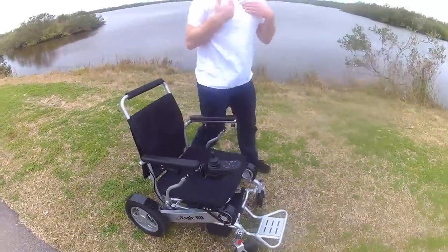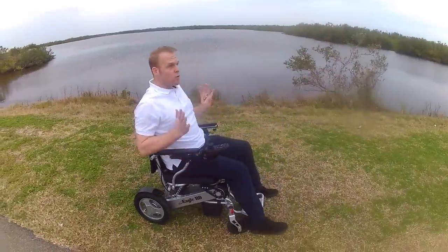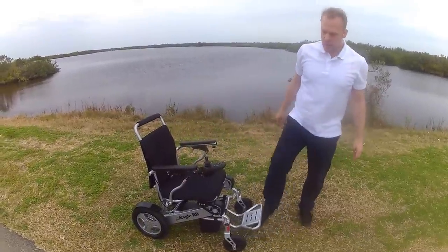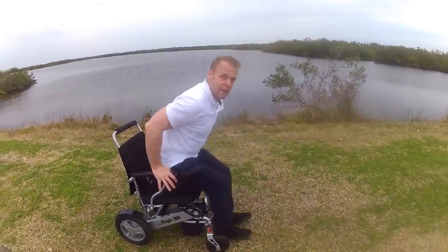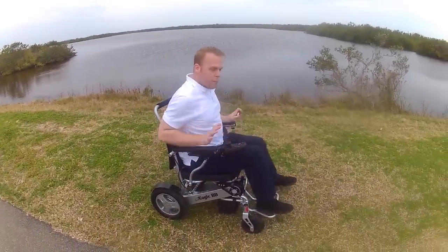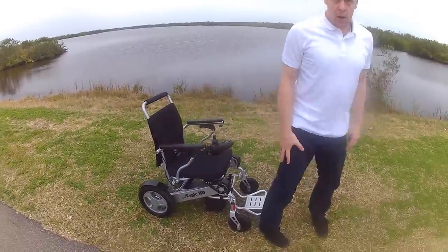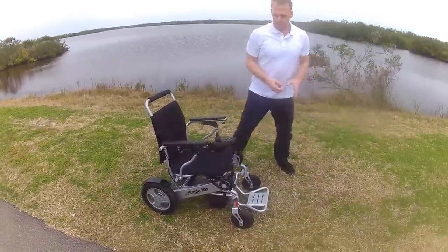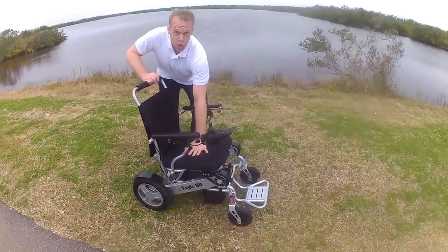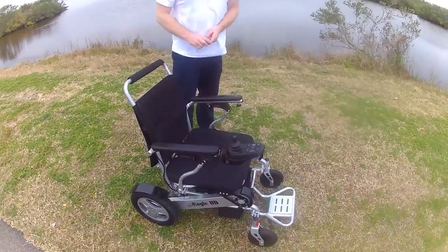Keep in mind, I am six feet tall, and it's very easy for me to get in and out of this chair — nudging the footrest aside and putting it back down. For people with very long legs, it would be very easy to put an additional cushion on the existing cushion to alleviate any discomfort on the knees.